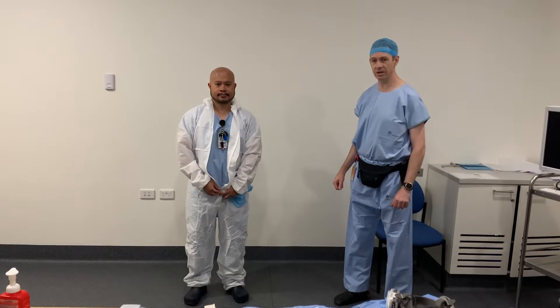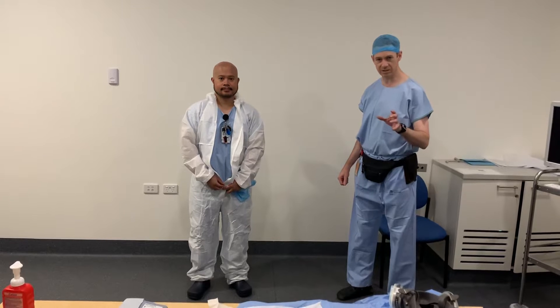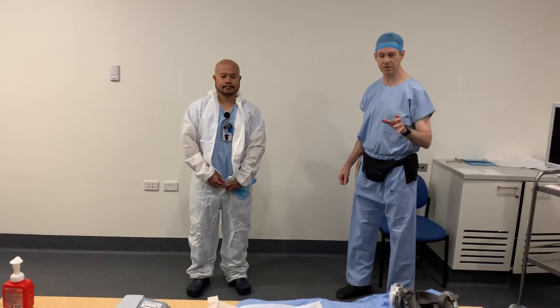This PPE is exclusively reserved for airway teams who are directly in contact with the patient and have a risk of aerosol through the patient's mouth or subsequently through a tube.